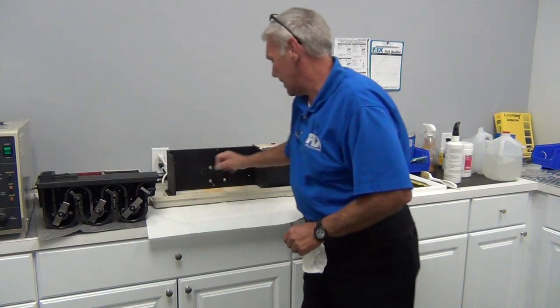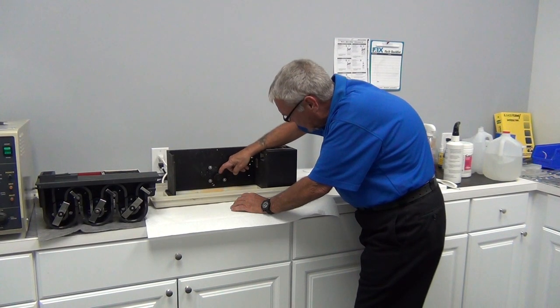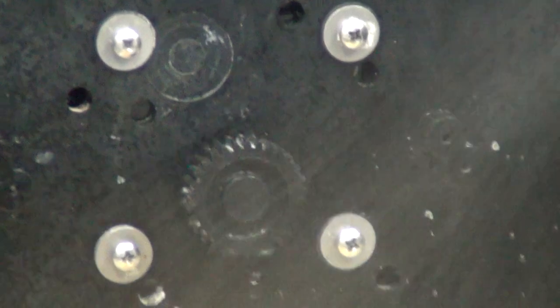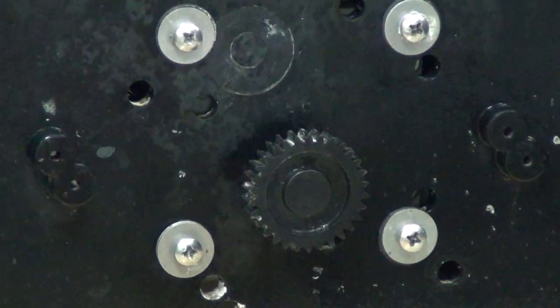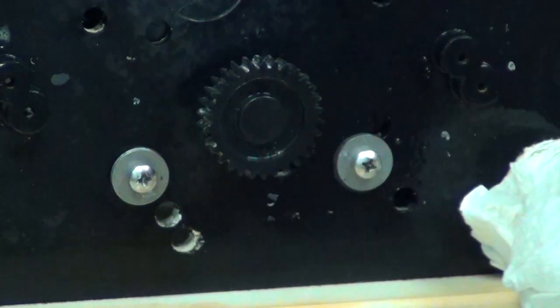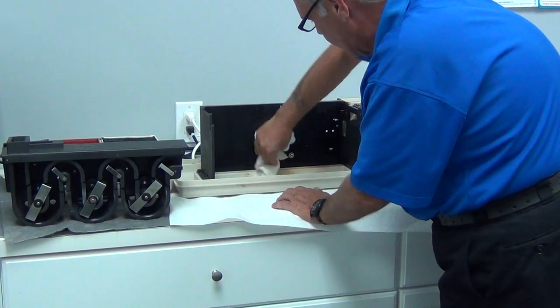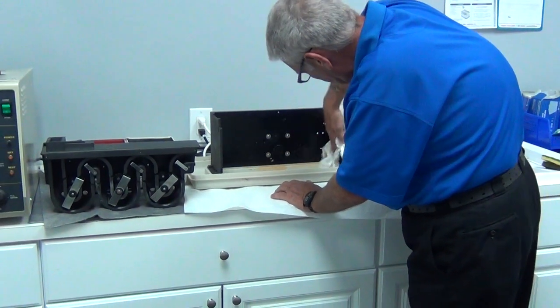Now we're going to look at the main frame of the processor. While we've got it apart, we're going to inspect the main drive gear for missing teeth, debris in the gears, and anything else of concern — and it looks good. We're going to get a little spray here. You don't have to do this, but it will make a good account and is a direct reflection on you. Nobody likes a technician that leaves things dirty or disorganized, and they are actually paying you to maintain this processor.